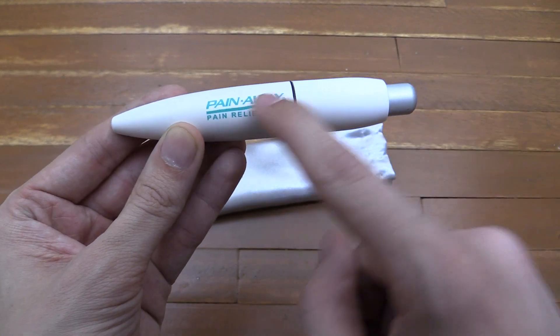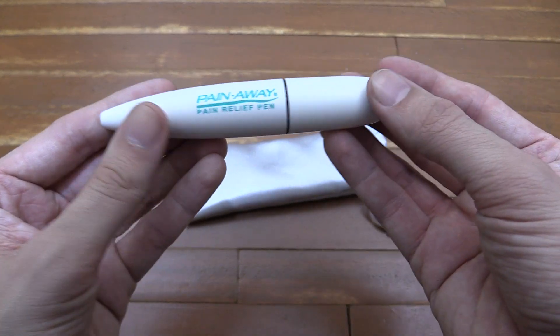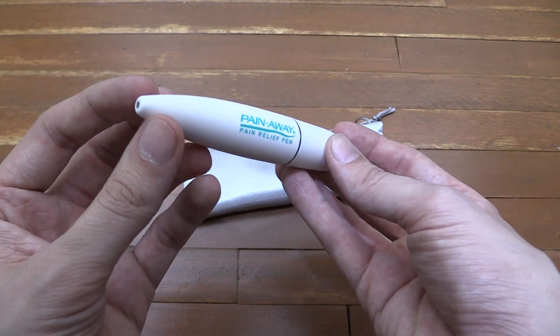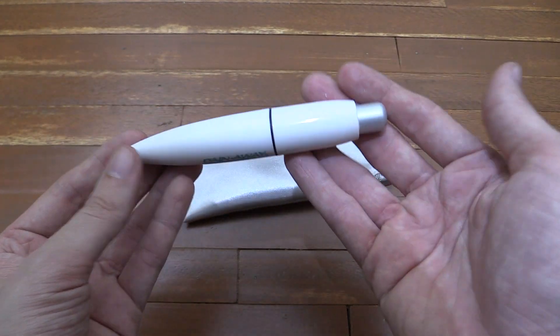Hi everyone. Today we're going to take a look at the PainAway Pain Relief Pen. This is a transcutaneous electrical nerve stimulator, also known as TENS.